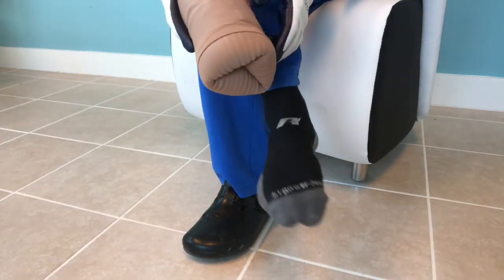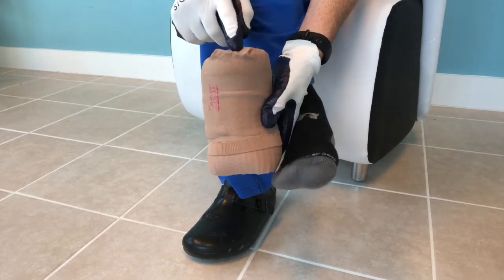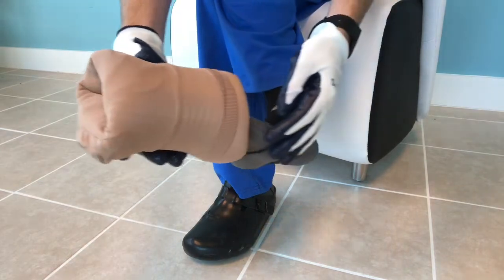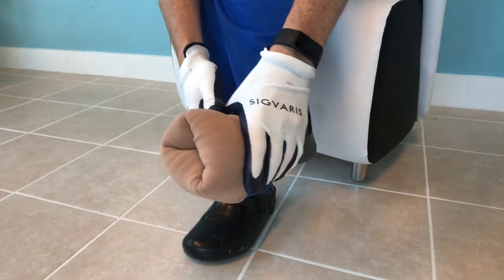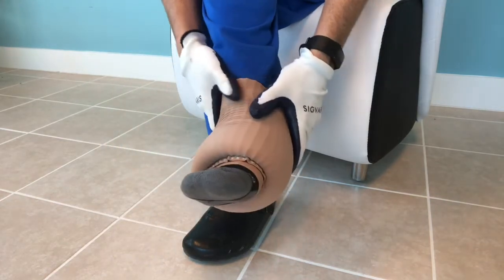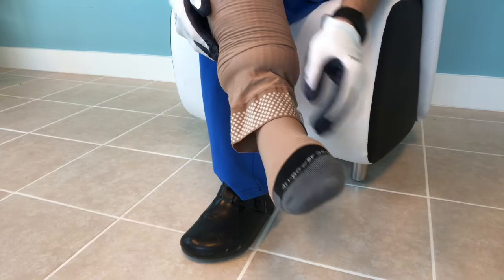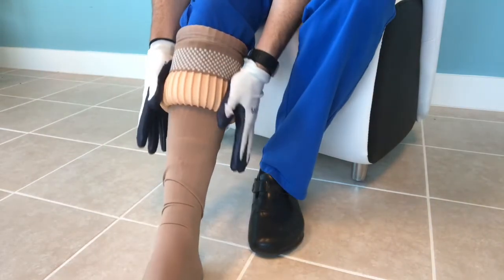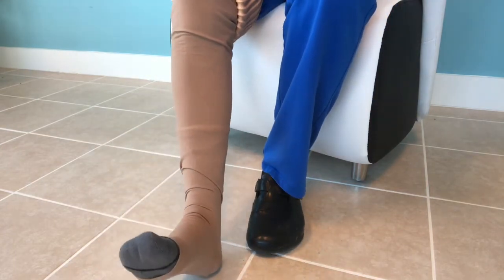So I'm going to try my application now. I'm putting it right on top of a sock — that's just to spare you from seeing my toes. Locate the heel just like with a closed toe. There's the toe side, and you start rolling it on, and what you'll see happen is it will feed down onto my foot. The longer the distance was in that space, the further back the toes will be. I would learn from this trial that I left a little too much space — a little too much of my toes and foot is sticking out. So next time I would leave a shorter space, maybe one finger length.